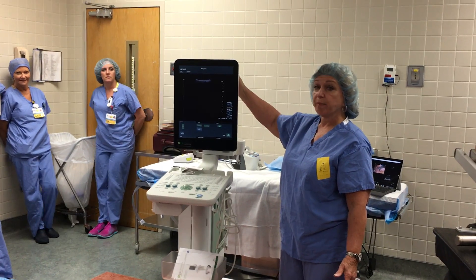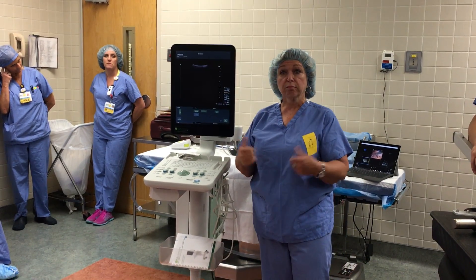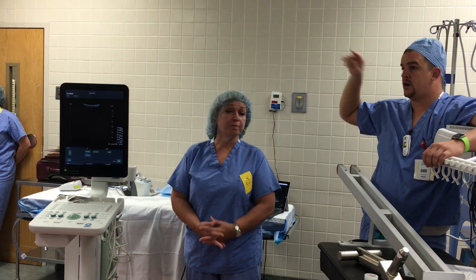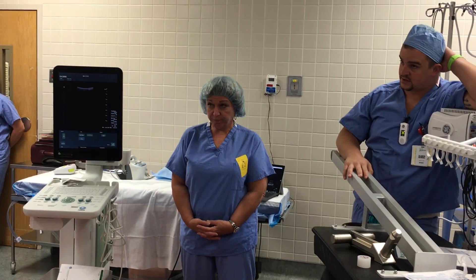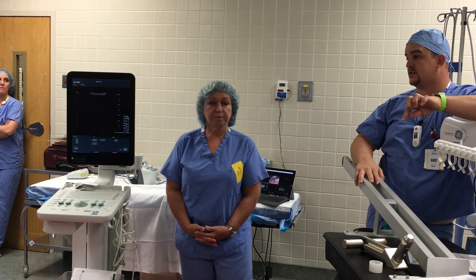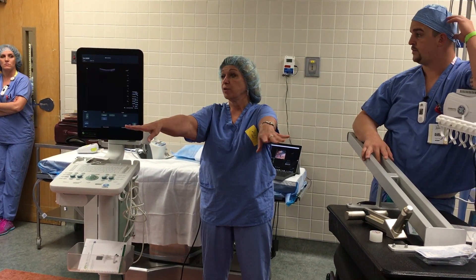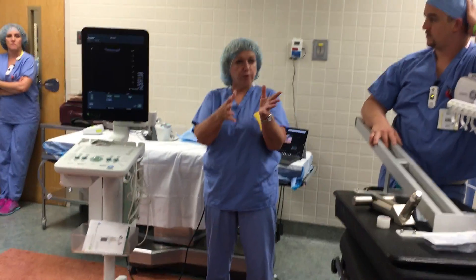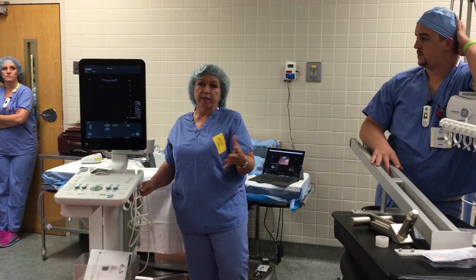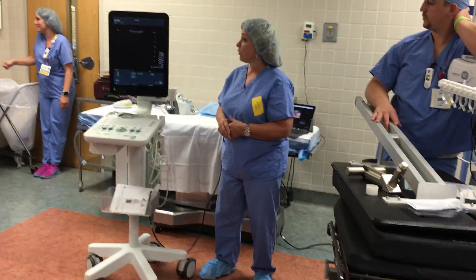Call me ahead of time if you're going to be doing a case so I can be on standby for you. I'd like to be here whenever you do the first case in any area. We have two of every single probe other than the burr hole neuro one — we only have one of that. They are sterilized with Sterrad now, not ethylene oxide, so turnaround time should be quicker for multiple cases in a row. All the leak testing and cleaning is done downstairs; we just have to wipe it up here. No bags over the probes — they're all sterile. Gel is really only used for the prostate probe to put it in smoother.